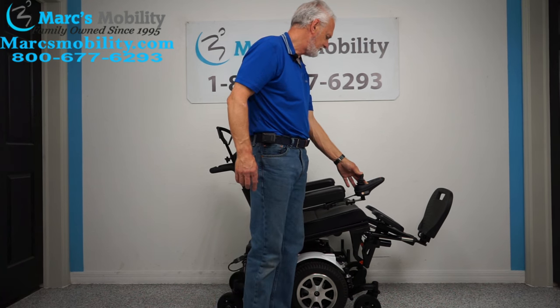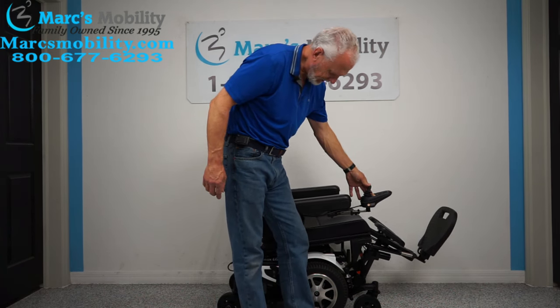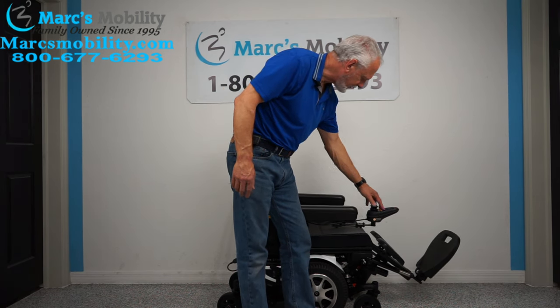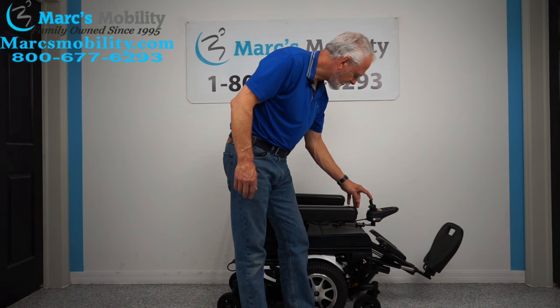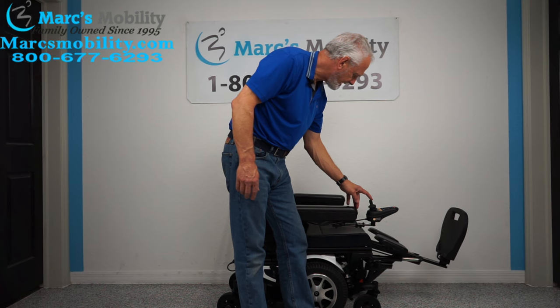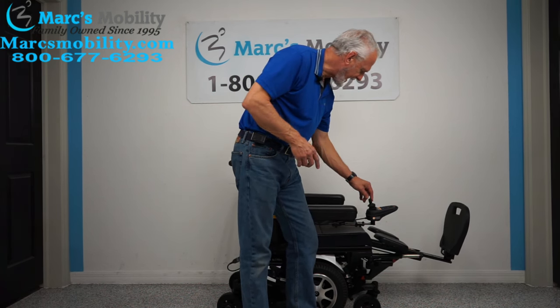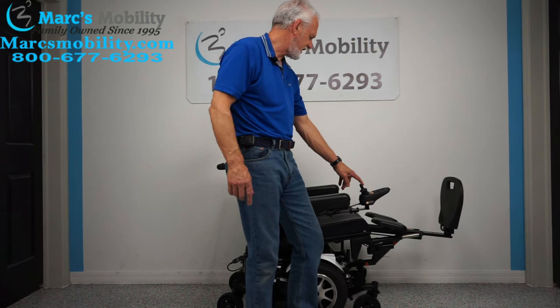I'm going to bring this seat all the way back down. You can't even hear the motors on this thing. Now I'm going to do the legs again. I'm not sure if we leave the legs up and then tilt back whether they'll stay up like that or start going down — let's see.